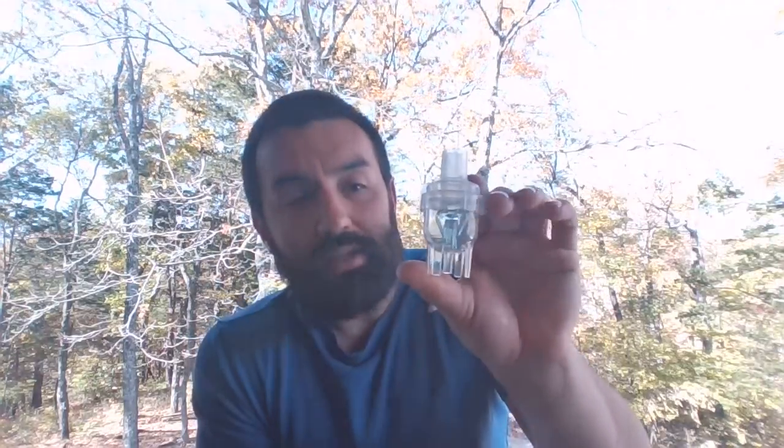So you can take a look and see how much volume you have inside of these things. For standard nebulization, our goal is generally to get a total fill volume of about 3 milliliters, okay? That makes a sufficient amount of these doses of most of our medications respirable, meaning we're aerosolizing them and making it available for the patient.